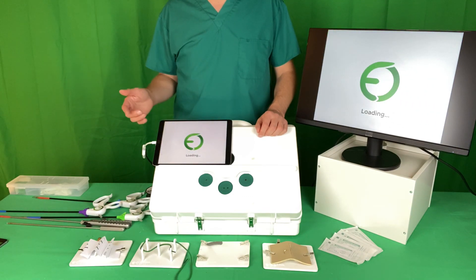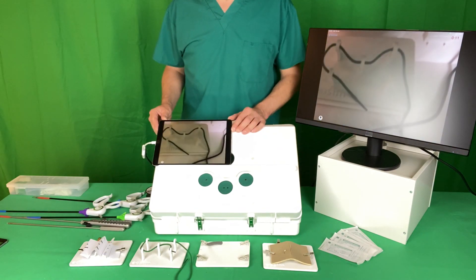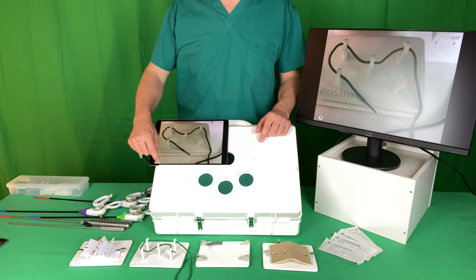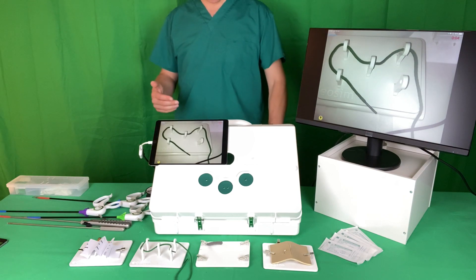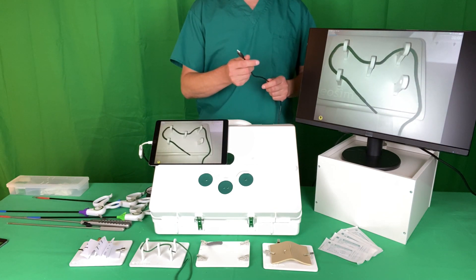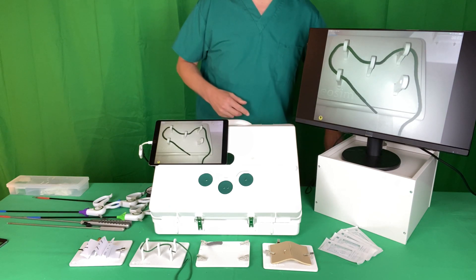When you click Start Task, it starts the camera of your device and you can see what's going on inside the box. If your device has got a flash, click this button and it gives you a nice coaxial light. If your device doesn't have a flash or there isn't great light, there's an LED strip inside which can just be plugged in using a USB.